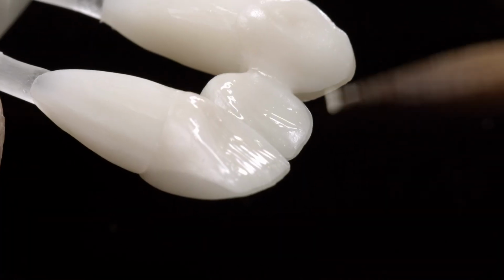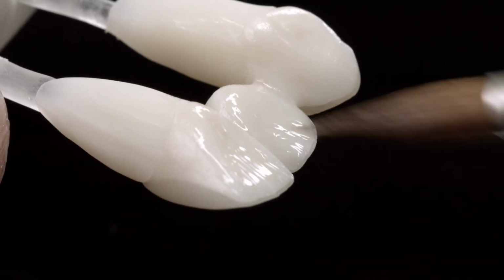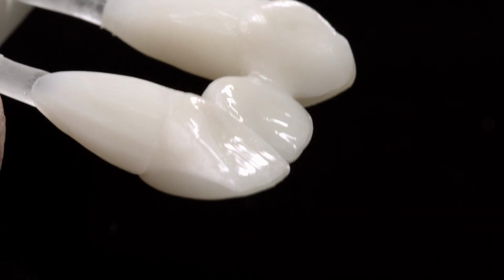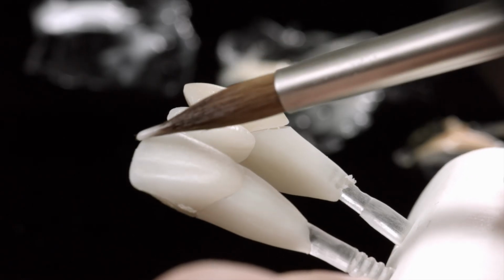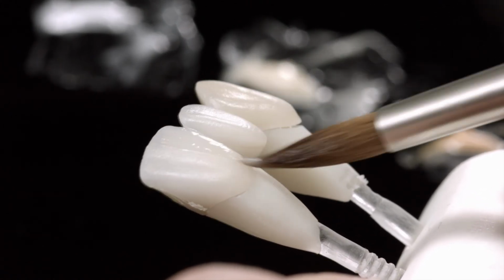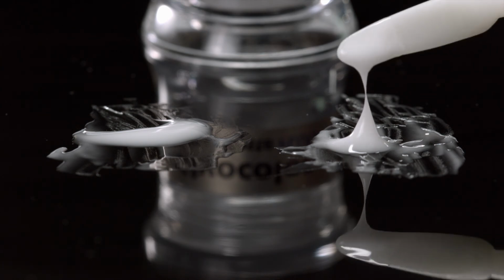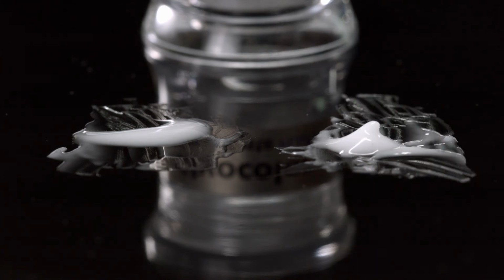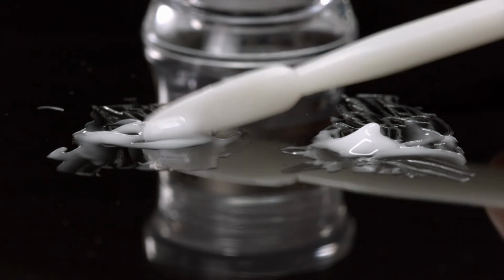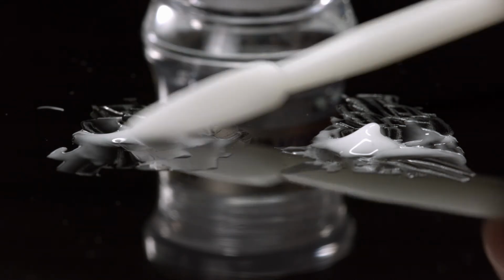The glaze paste gives partially veneered restorations, or those fabricated using cutback technique, an evenly distributed, high-gloss finish. Apply the glaze evenly onto the monolithic and veneered areas. If you require less shine, dilute the glaze paste or use IPS Ivocolor glaze powder instead of the glaze paste. It is even possible to use a combination of glaze powder and glaze paste.